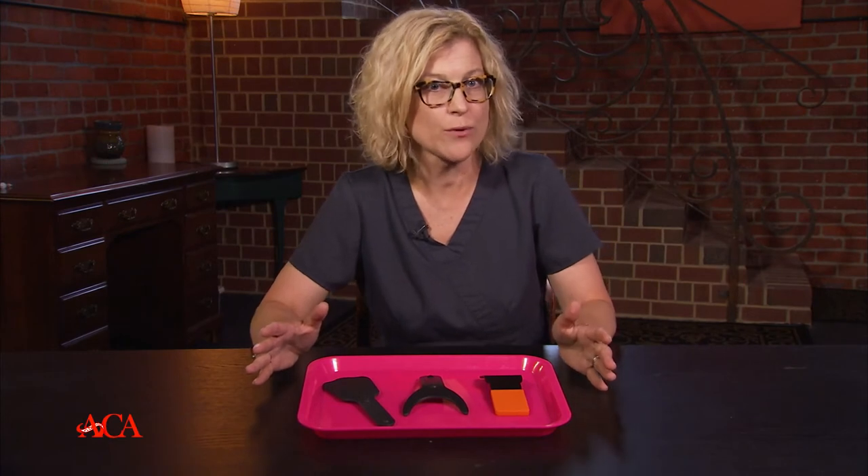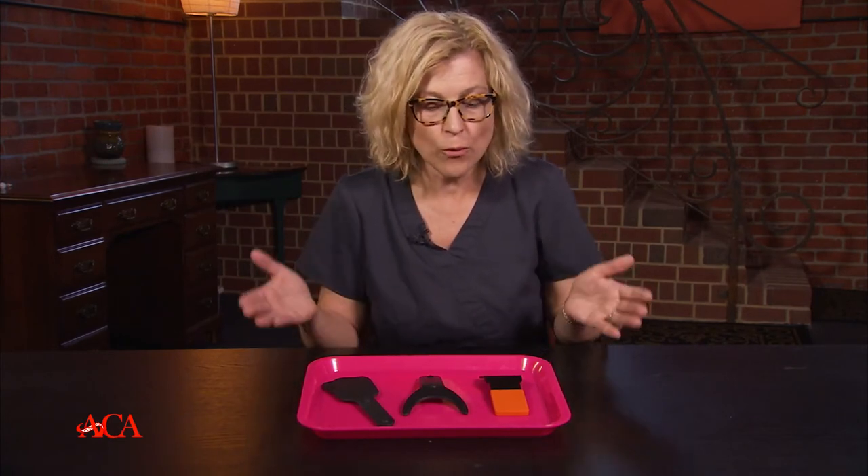There are lots of different contrastors out there, and I want to talk about the ones that are available and the ones that I feel are really great tools when talking to patients about the dentition, and also really enhancing craze lines and cracks, showing patients they are really destroying their teeth. It's so hard to just ask patients about the cracks and whether they noticed these little areas, and a lot of times they'll tell us no.